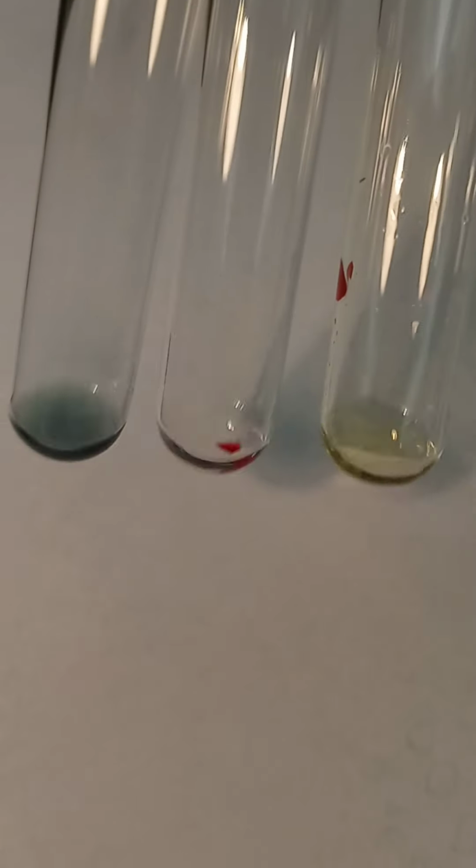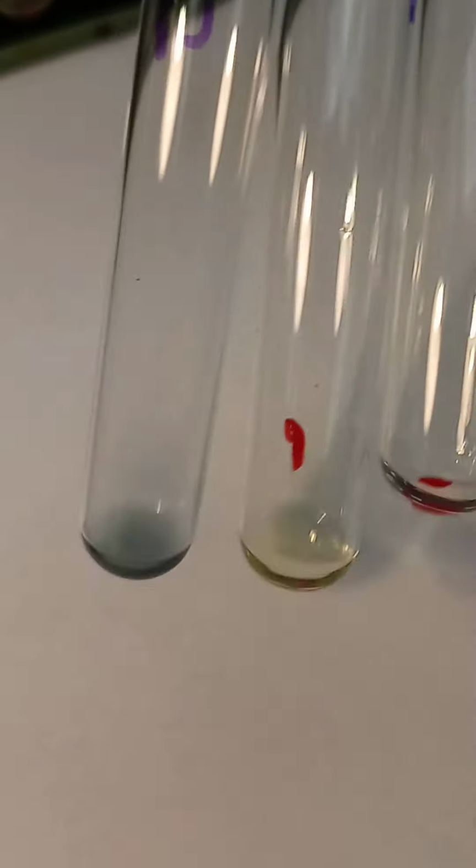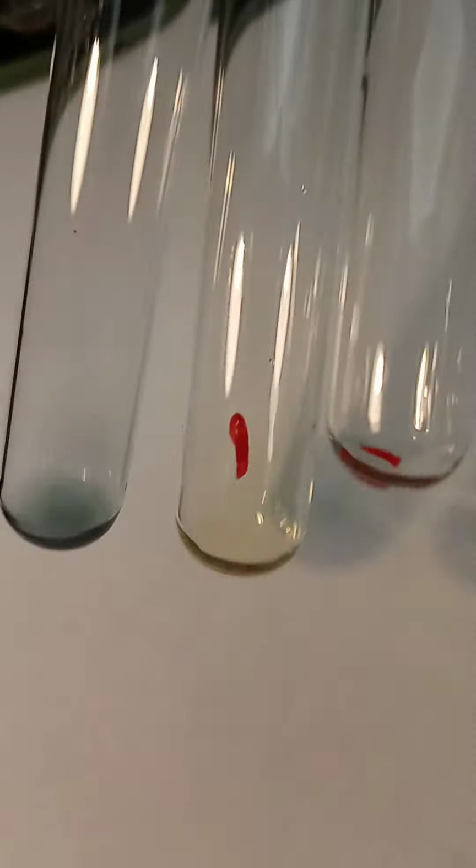Your A comma B. So you have your anti-A tube, then, well, that's the A comma B. Let me put them in a different order here. Okay, so we have our A tube, then our anti-B tube, then our anti-A comma B tube. So you'll answer the questions that correspond with those and tell me what you would call that.